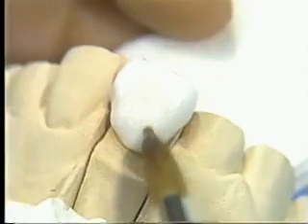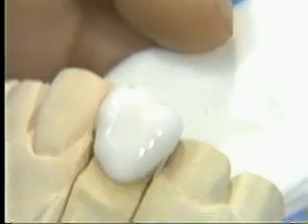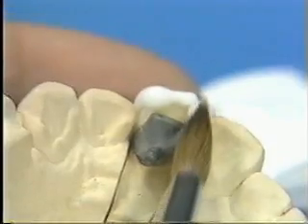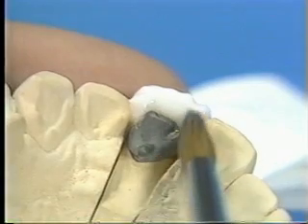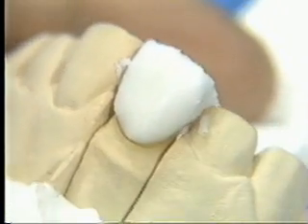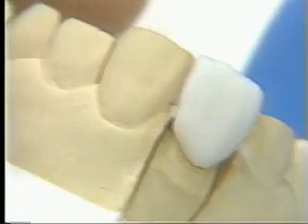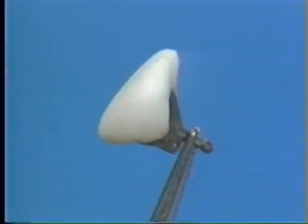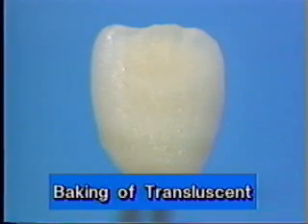Build up 10% larger than the same tooth on the opposite side. The baking of translucent porcelain follows the same program as that of body and enamel porcelain.